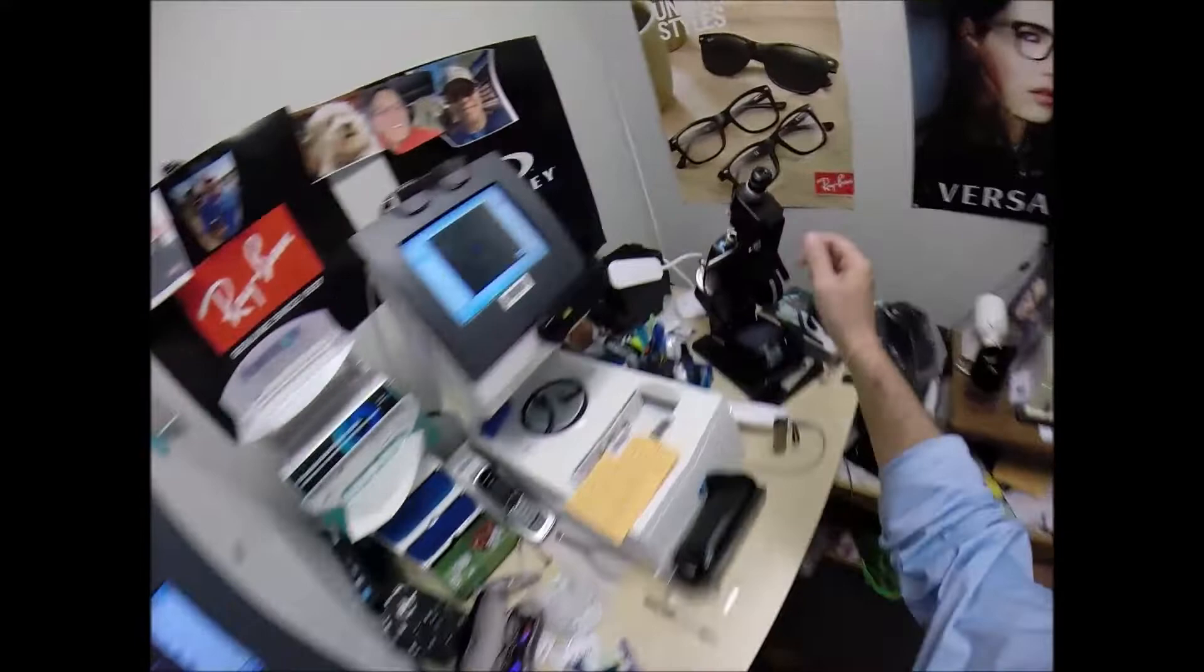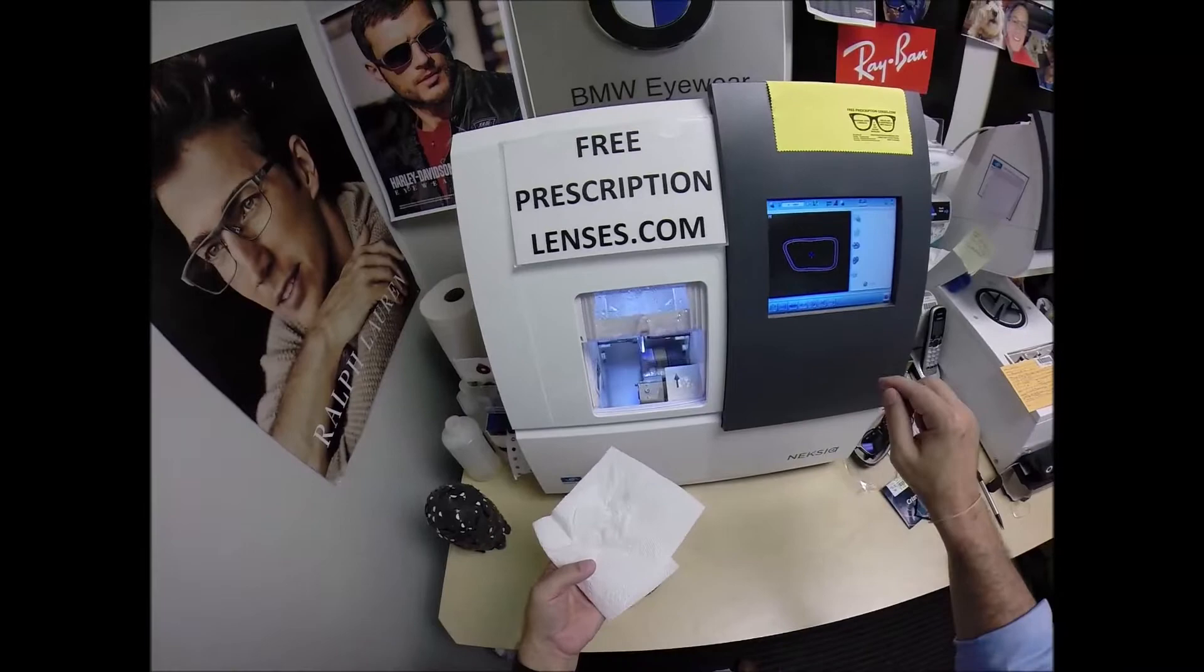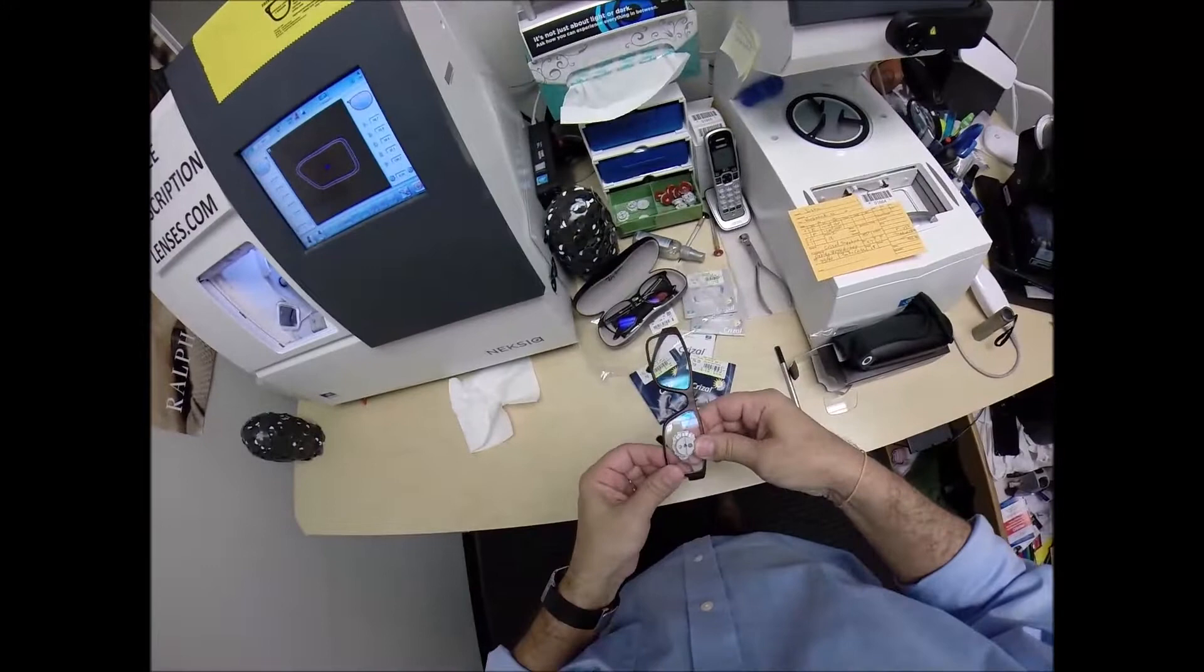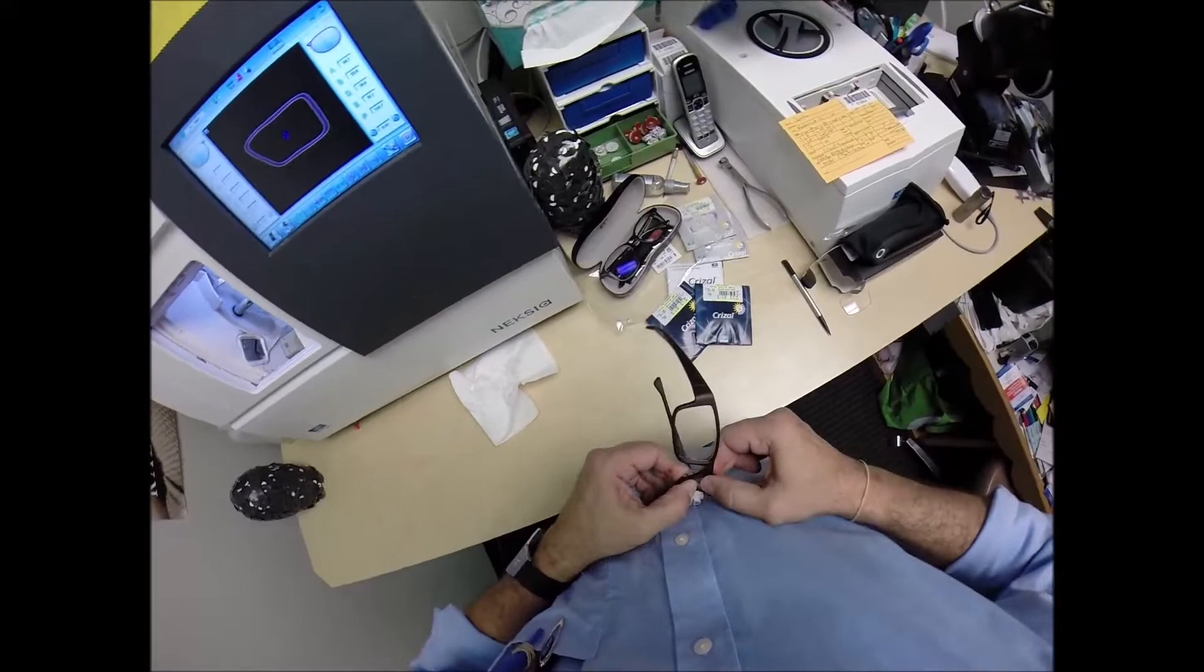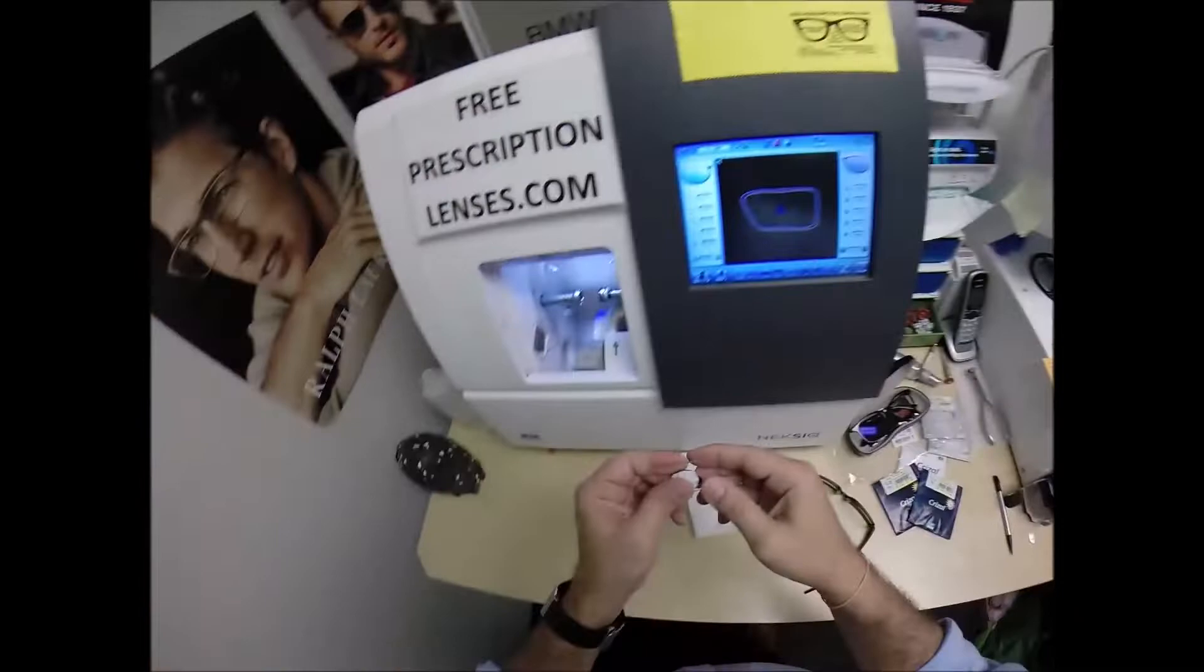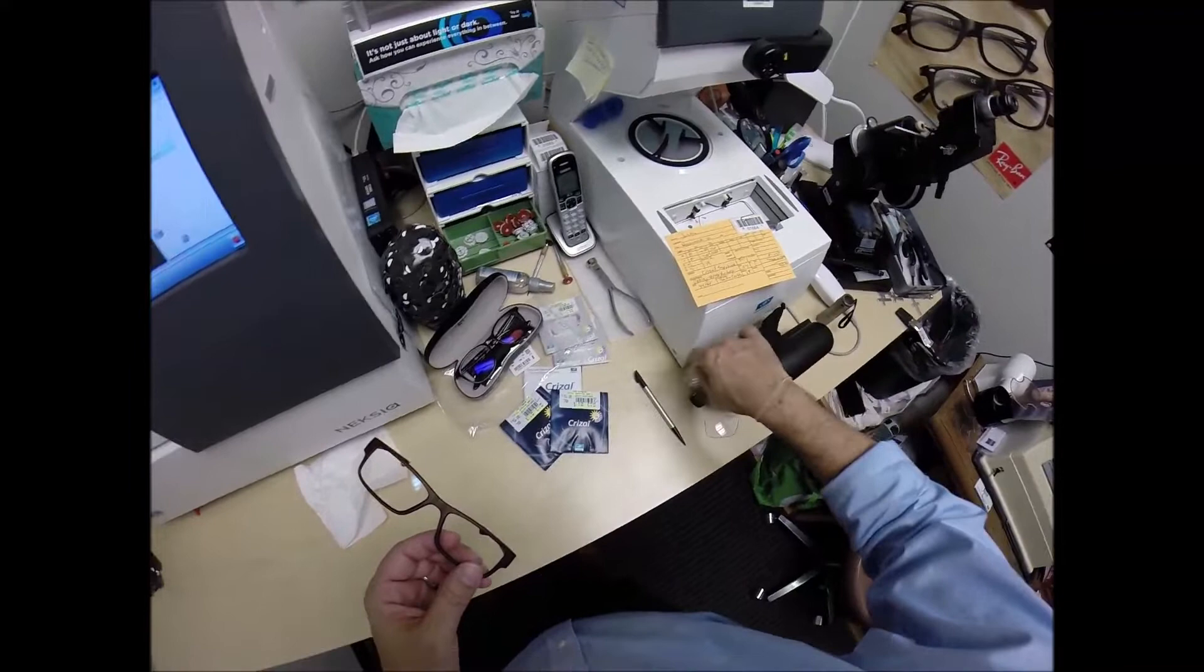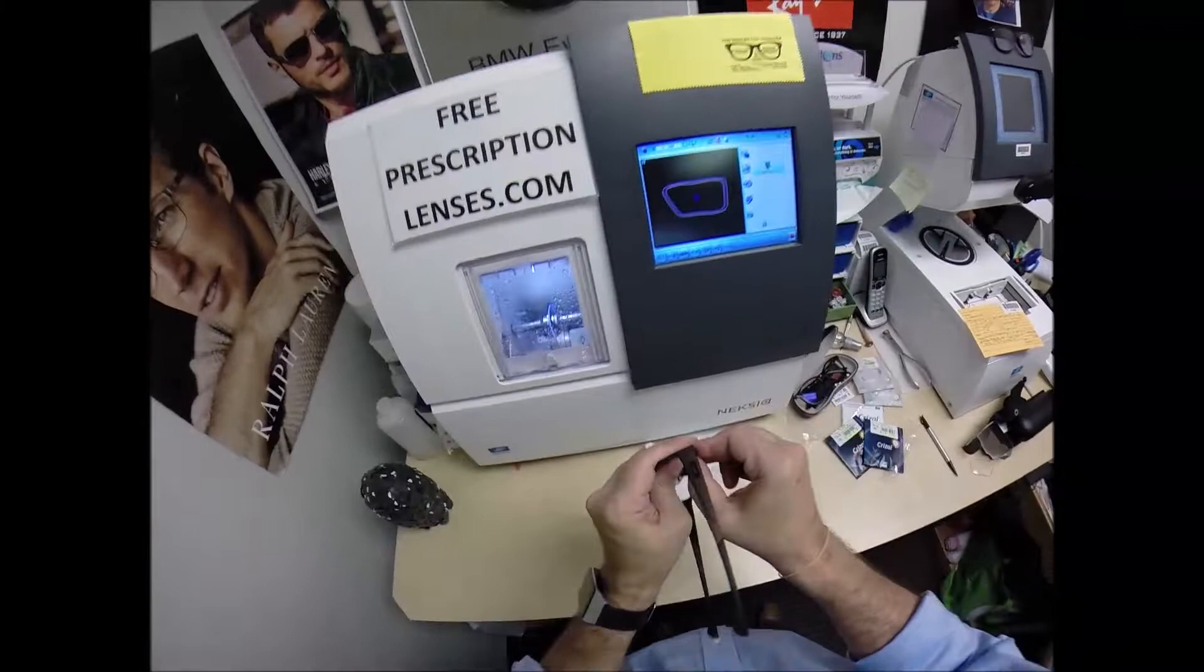In just a moment, the door will open. Open up this clamp, pull the lens out, dry everything off, run my thumbnail around to get all the optical sawdust off the edge of your lens. Tuck the lens in at the outside corner. Actually, it does not want to go, so I'm going to take it down a tenth of a millimeter. I'm going to hit retouch. It has a little bit more power on the left side, so slightly thicker, just enough to prohibit it from easily popping in, and that's why I put the safety bevel on there, because as I was pressing the lens in there and applying force, I didn't want to scratch, even the least little bit, the edge of that frame.